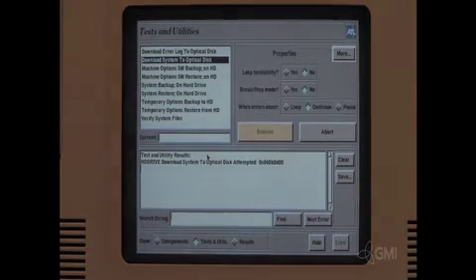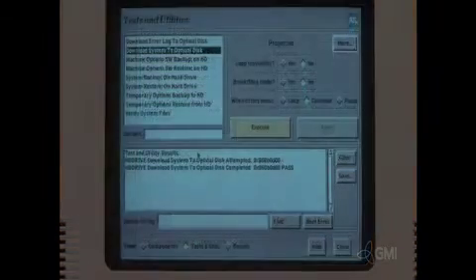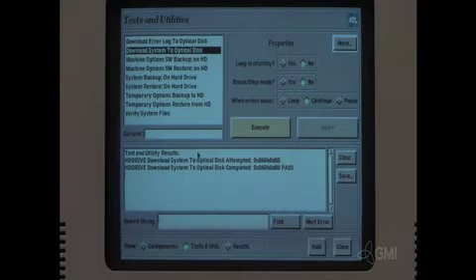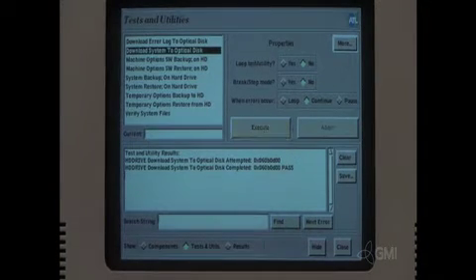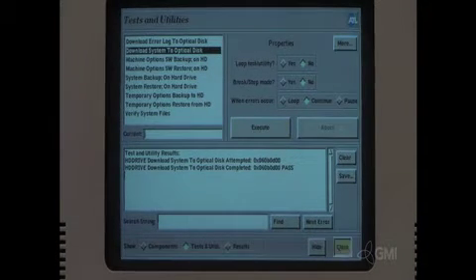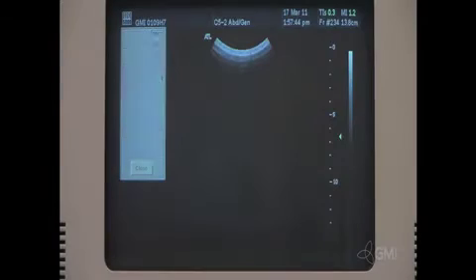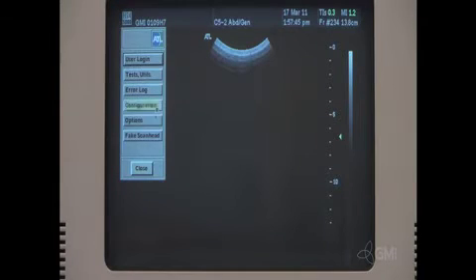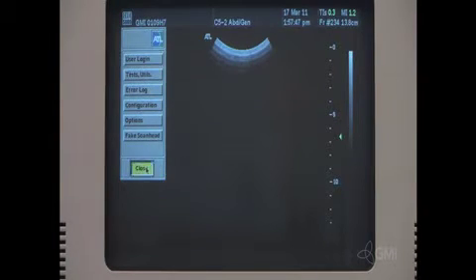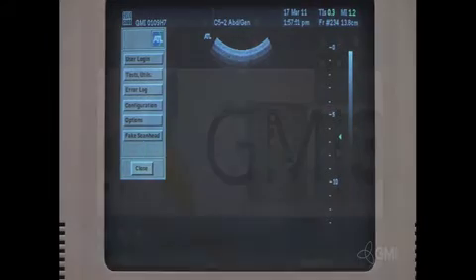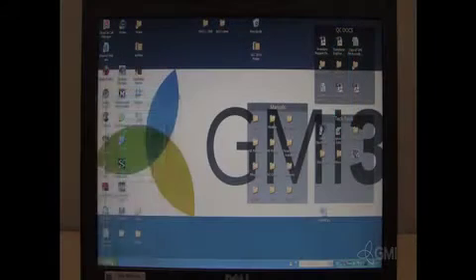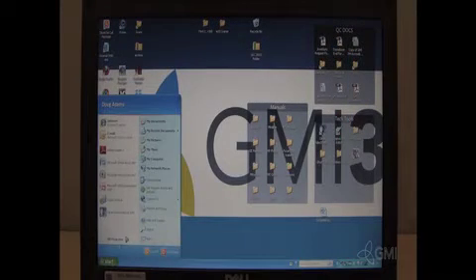Select OK. Backup should take anywhere from 15 to 20 minutes. Select close. Select close. Select reboot. The system will eject the backup disk during the reboot cycle.